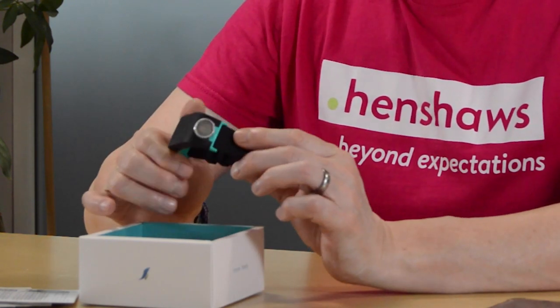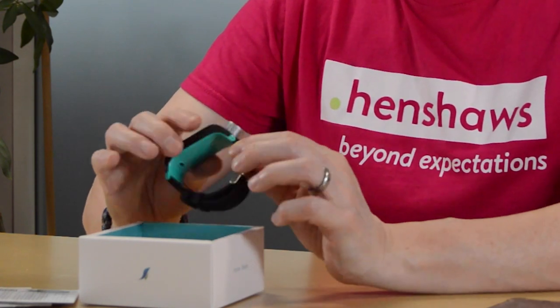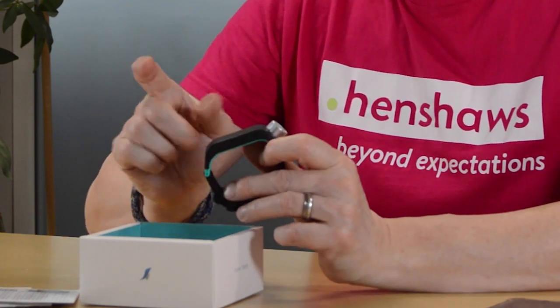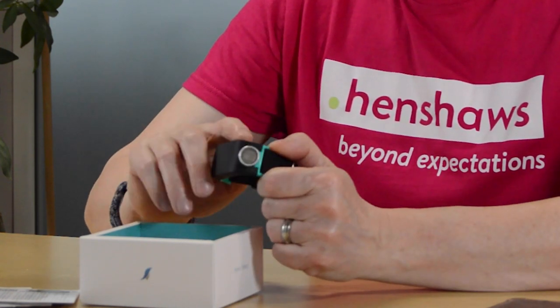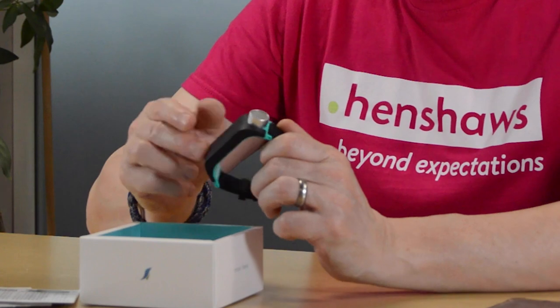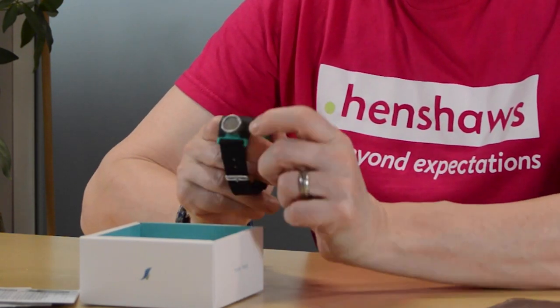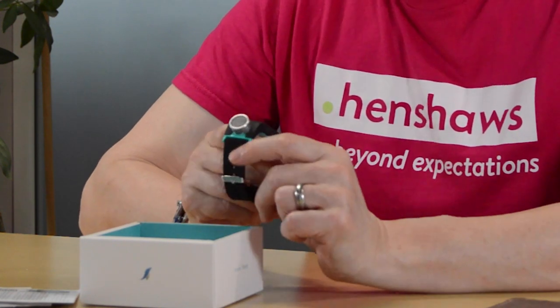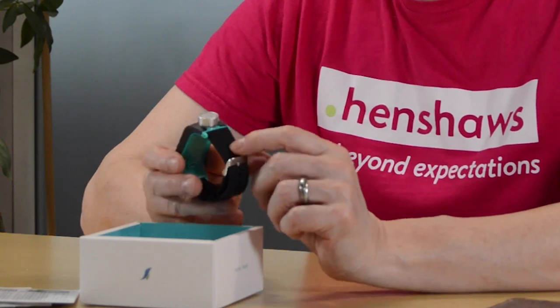The band is nice and simple — it's a watch band with a body to it, like a touchpad. It's only got two tactile buttons, and then the main event is a sensor — a sonar sensor invented by a German inventor in 1913, so it's like 1913 to the 21st century for this band.